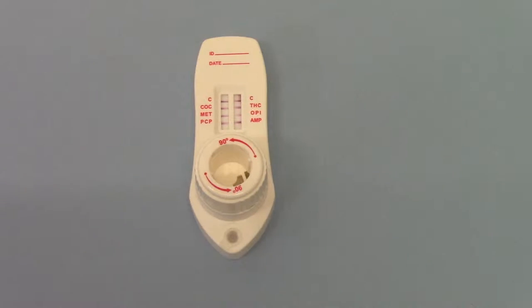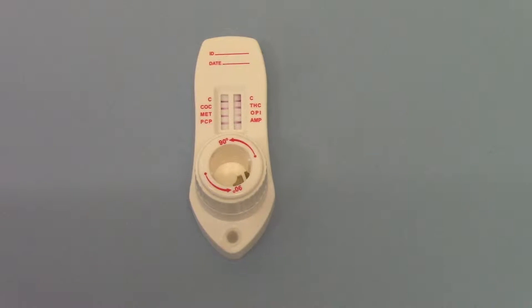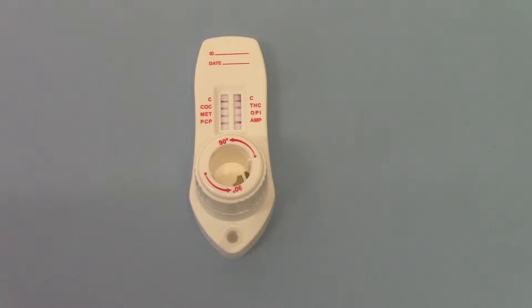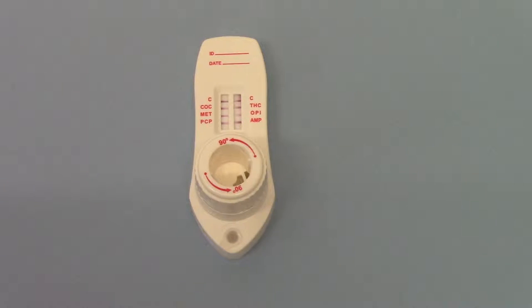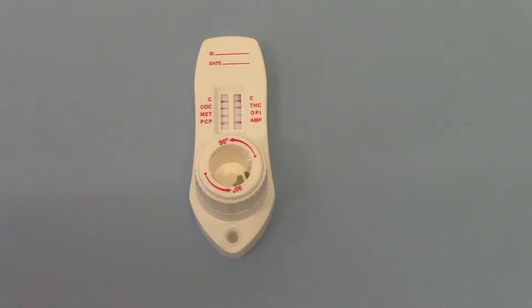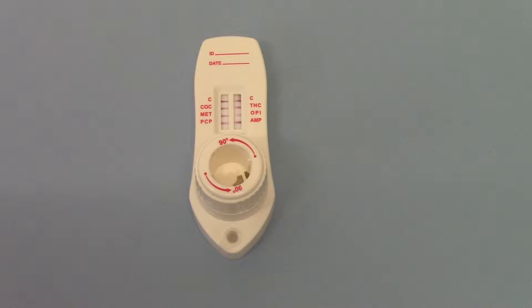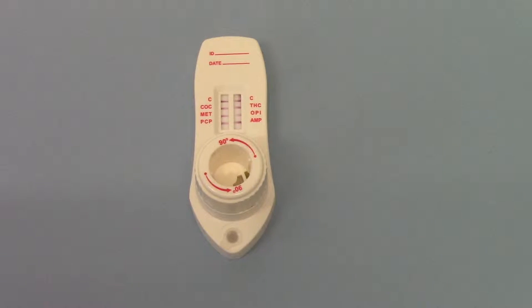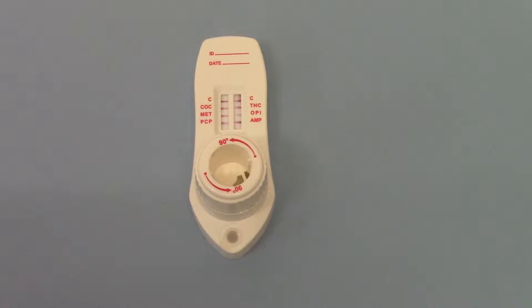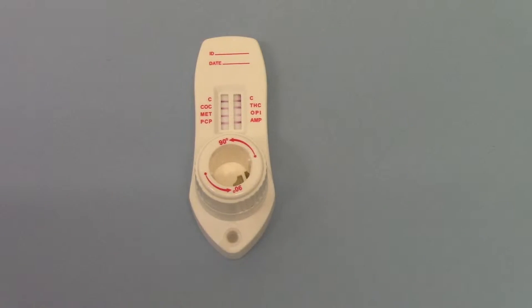Welcome back to part three where we're showing you this test that has now completed its time frame. You'll see that the membranes, the background pink colour has cleared leaving you four clearly marked lines on each test membrane.